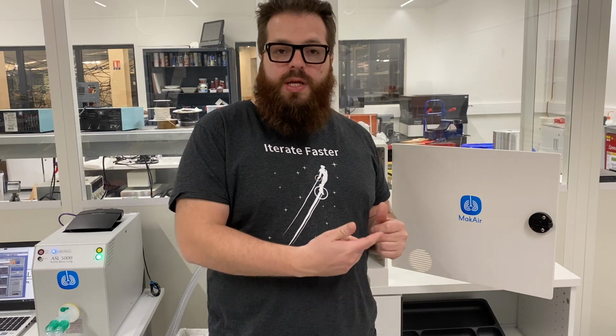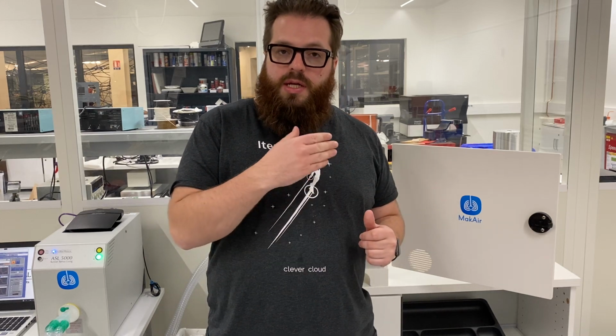Hi, this is a short video about all the MakAir functions. So, MakAir is a ventilator made as an answer to the emergency of the pandemic crisis of COVID-19. MakAir has been designed to answer a few exigencies. It's a design that has actually been made with physicians and doctors, so it answers the real pandemic emergency needs.